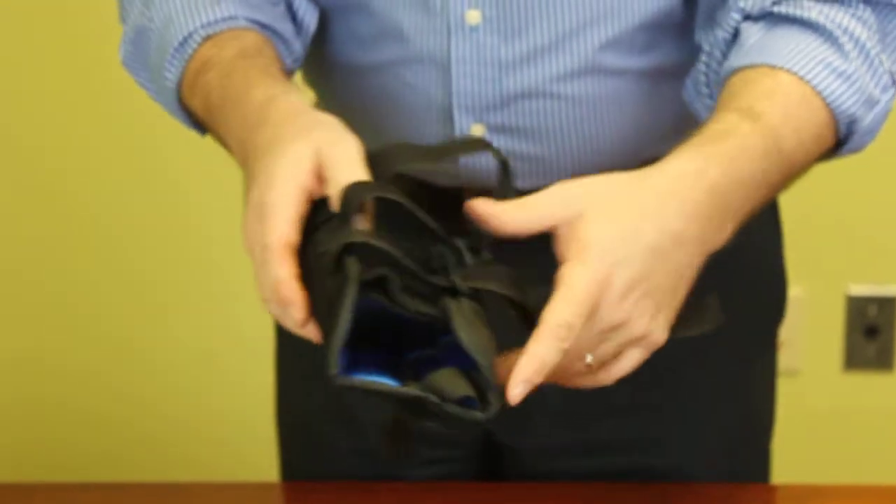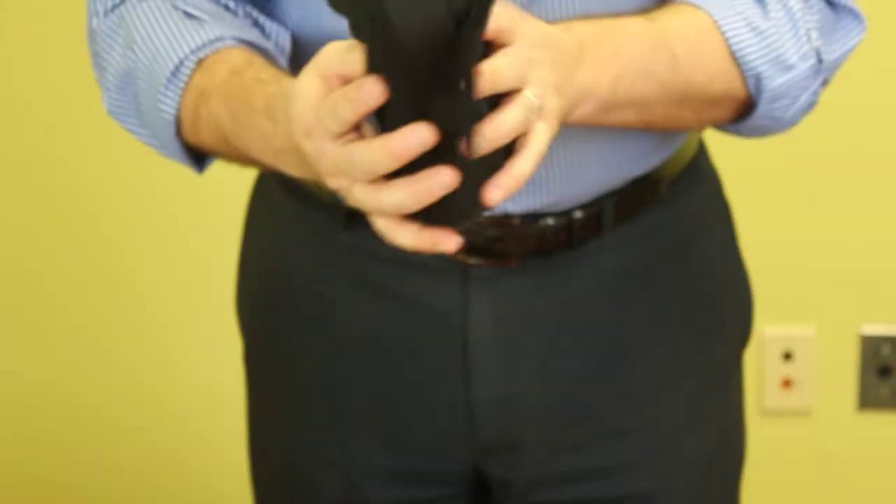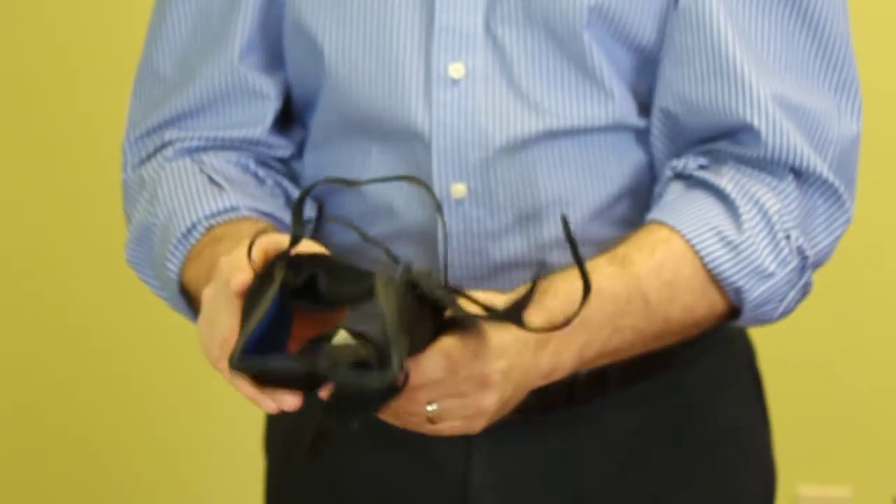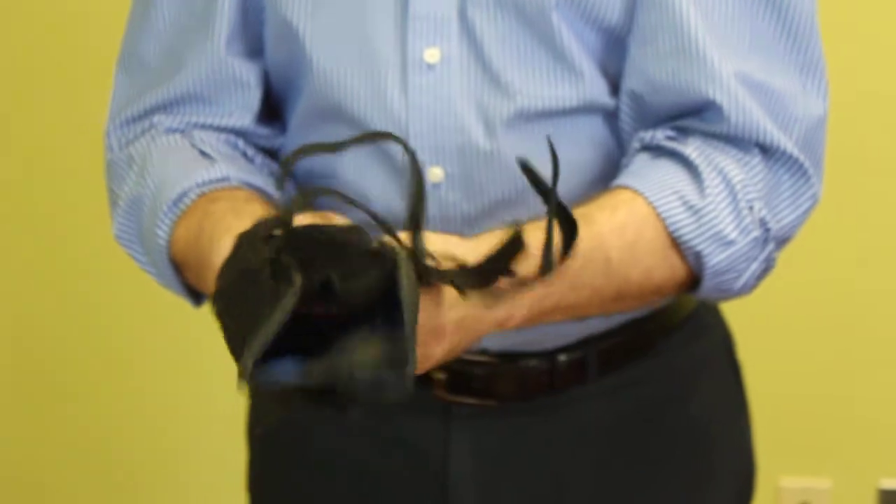As you can see, the device is very lightweight and very soft, but yet it does have the extra support panels, which will give the wrist and thumb extra support.